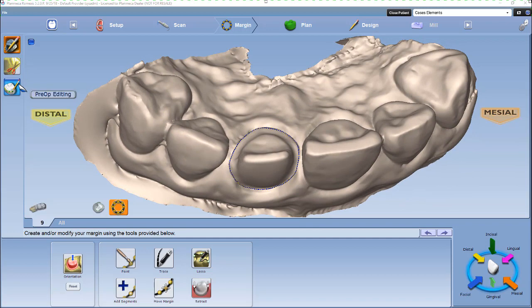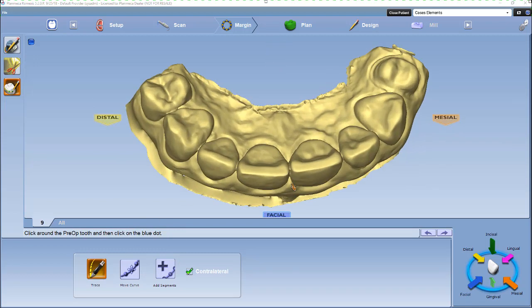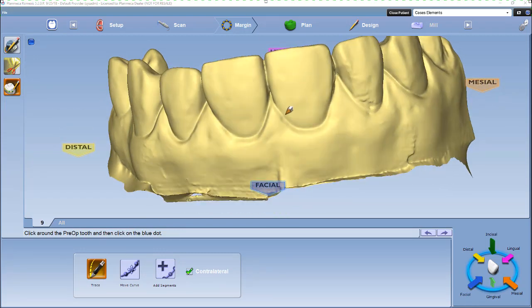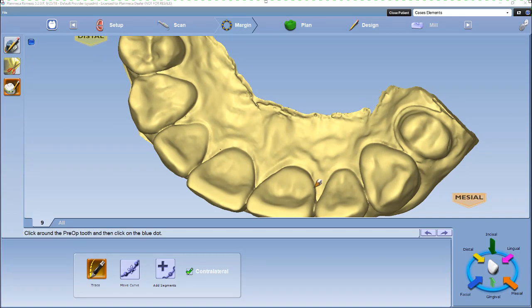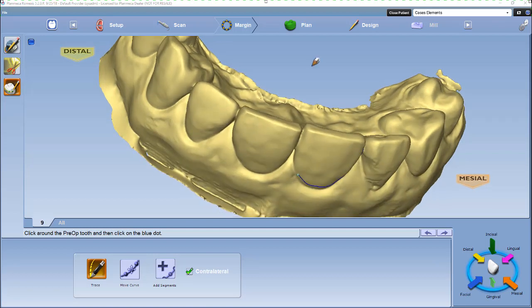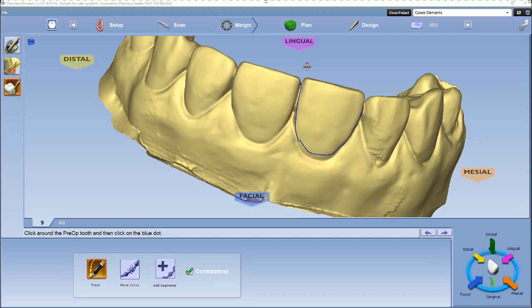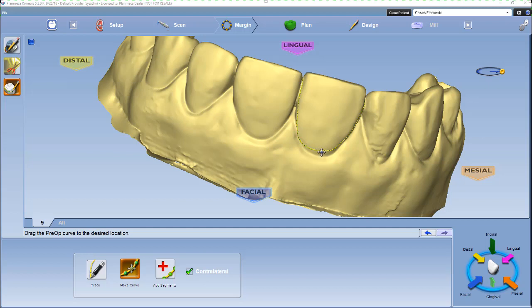Now we're going to go to our pre-op editing tool. We'll click contralateral, and then we're going to click trace. We're going to trace tooth number eight all the way around. The reason why we're tracing tooth number eight is because we're using the existing tooth to be put on tooth number nine. So you have all your information drawn in here. And just like marking a margin, you have the move curve, so you can make adjustments as needed.